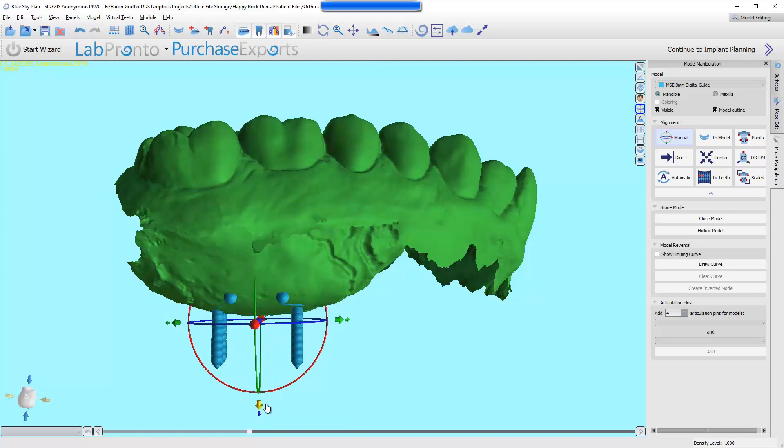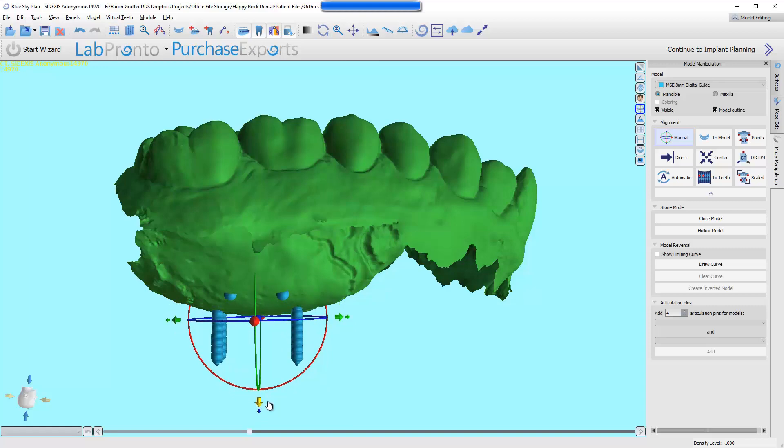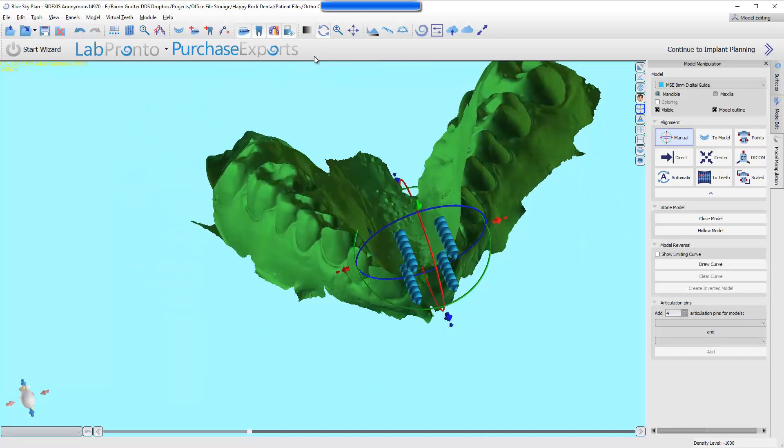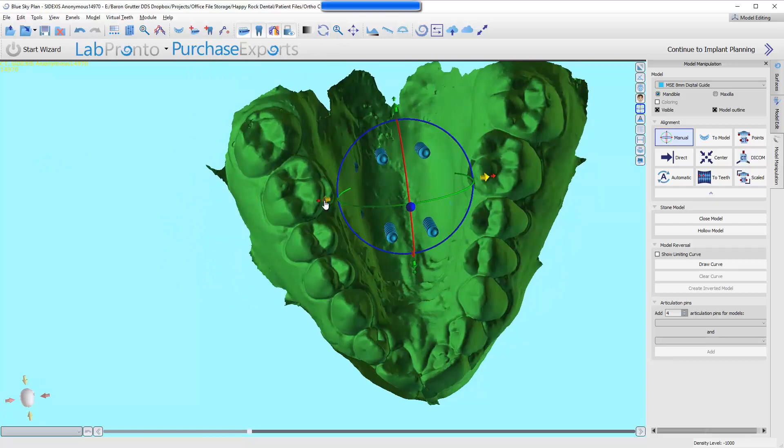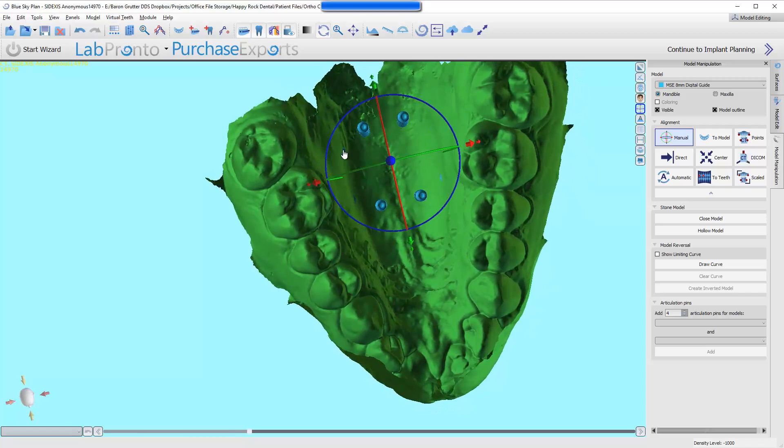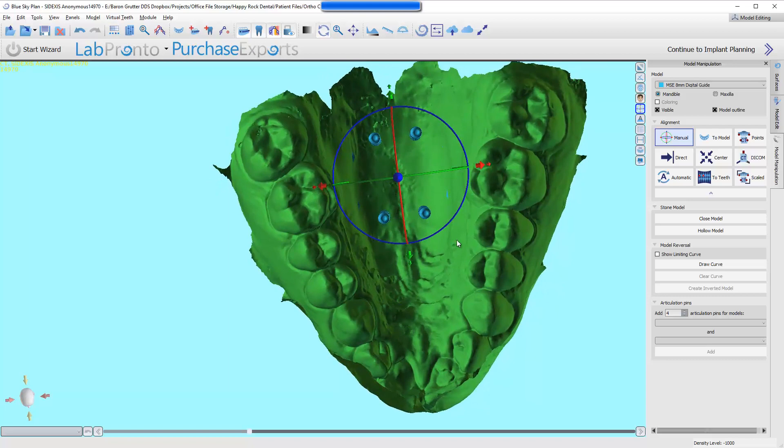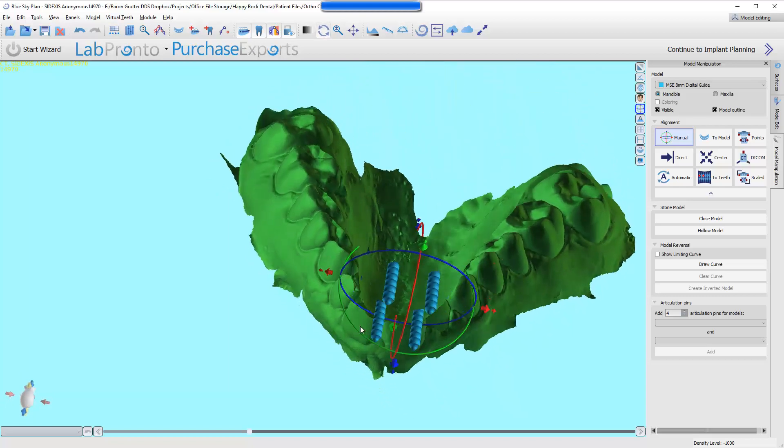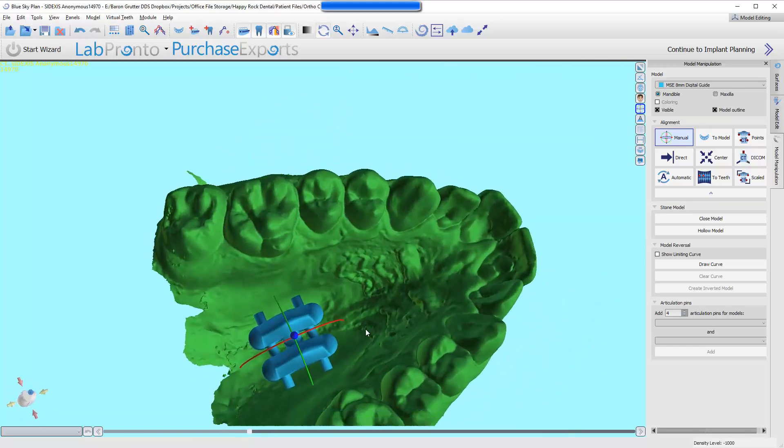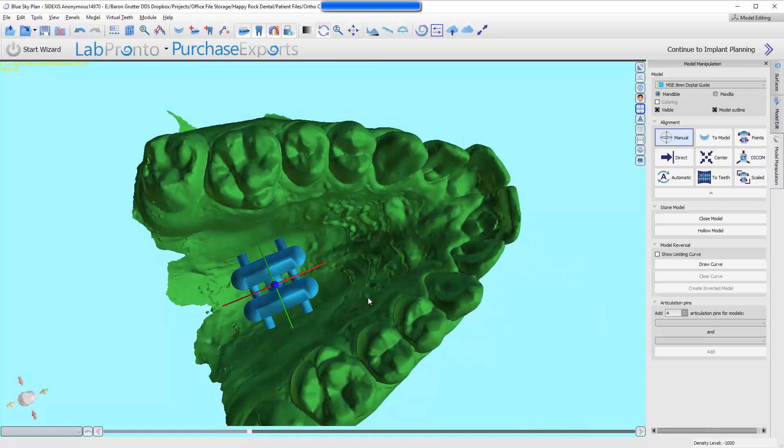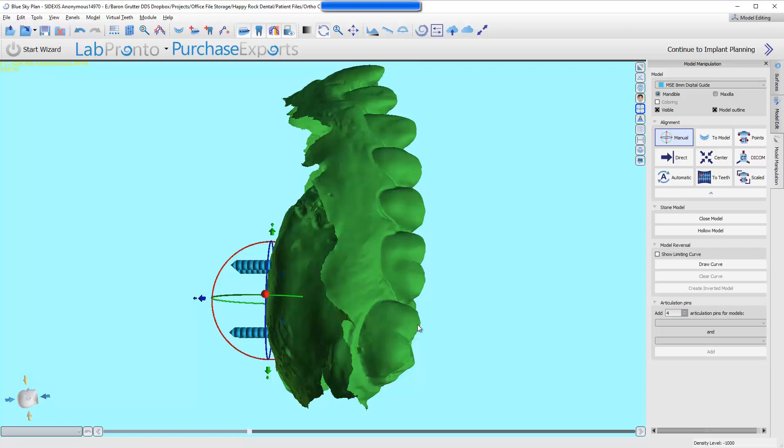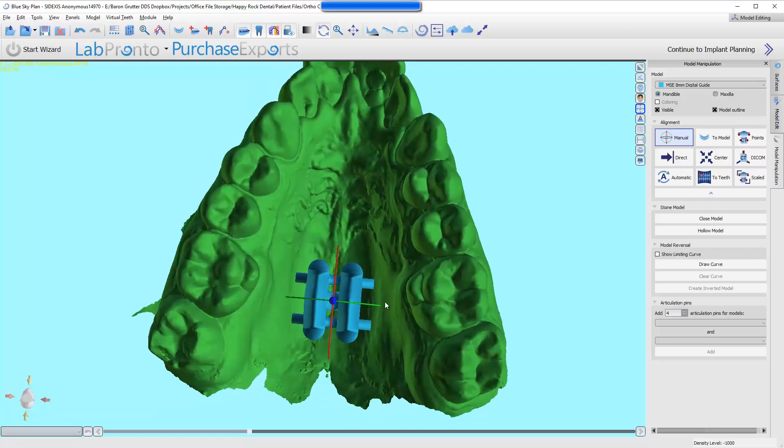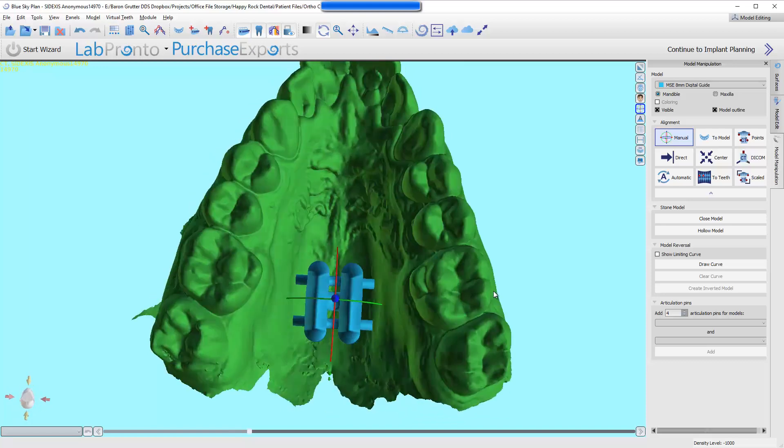Now we've got, we are at 1 millimeter in the back and 2 millimeters in the back. These pins are just barely impeding on this side, and just barely touching on that side and this side. I think we're pretty well centered. Now, you can also rotate it if necessary. This would be just more like the lab-based approach, and it looks pretty good. I would say it fits pretty well, but the truth is we have no idea if there's bone here or not. We don't really know until we overlay the CT scan, but this is a starting point. If we've got thick bone in the area of these, then we stop. Send this to the lab, and this is what we want.